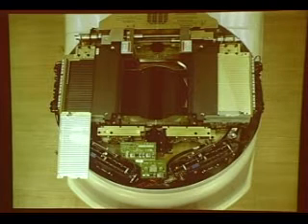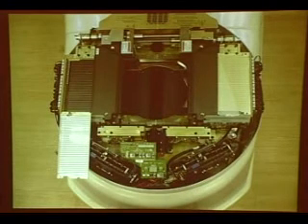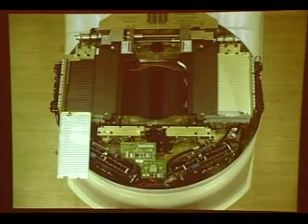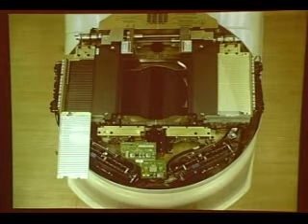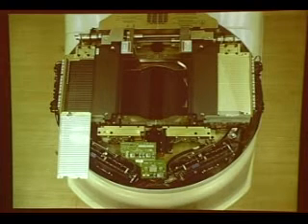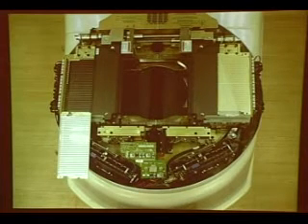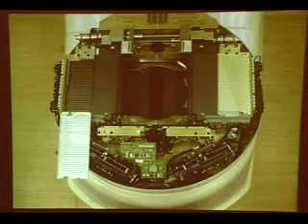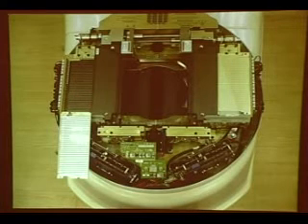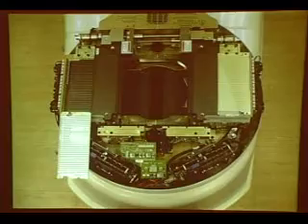We won't get any more complex than that. This stuff starts to look like Chinese algebra pretty quick — very, very complex calculations that go with it. But the point is, by using this type of system with these tertiary collimators, you can adjust the dose inside of a three-dimensional volume. I'll show you an example of that in just a couple of seconds.